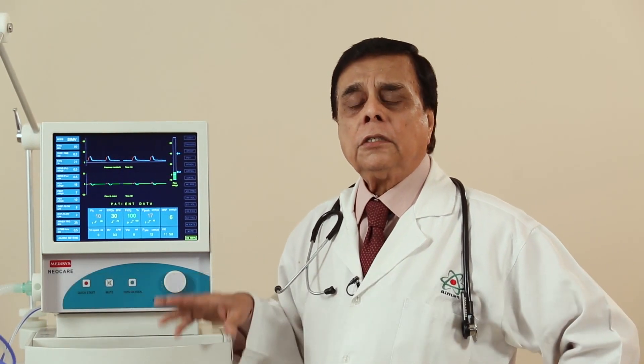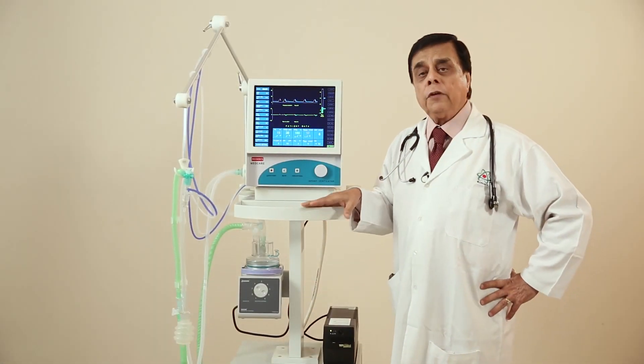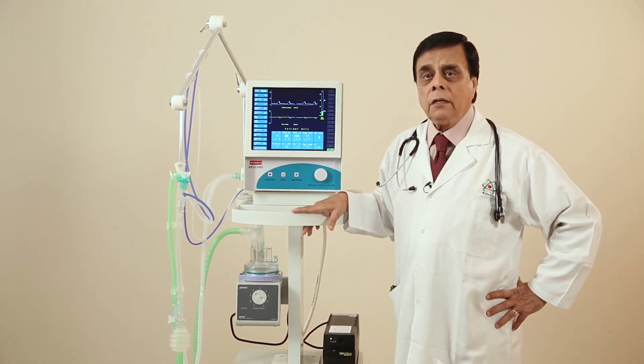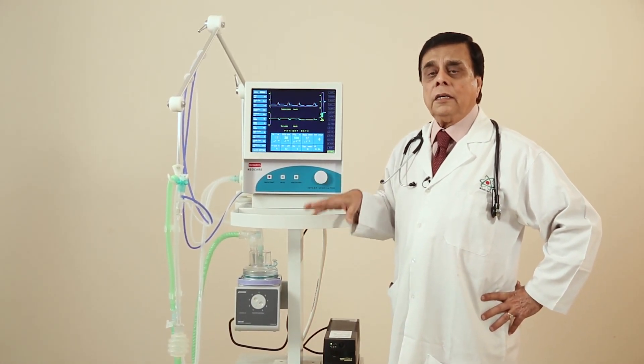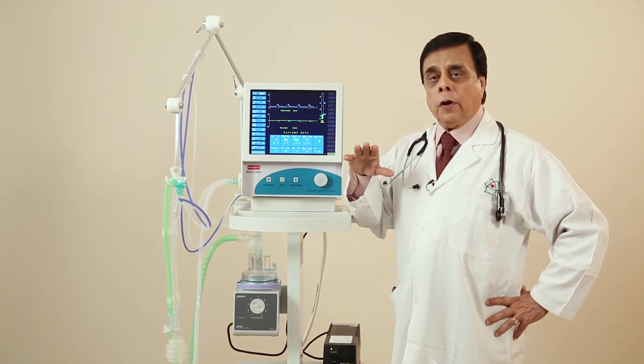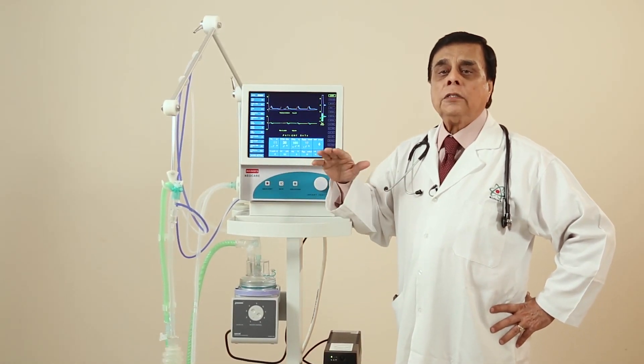This is NeoCare, which is running on a continuous flow principle. You may ask what is new about it — it is the age-old thing. We have done it after considerable deliberation. What we have done is that it is a low flow continuous pressure system which is low resistant.